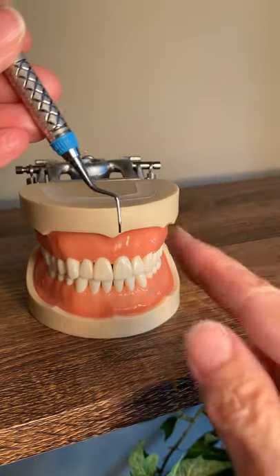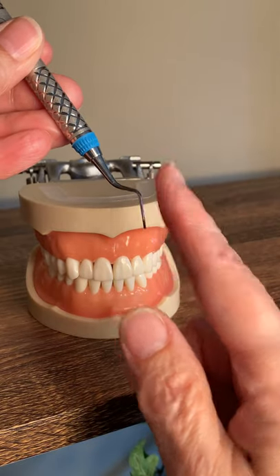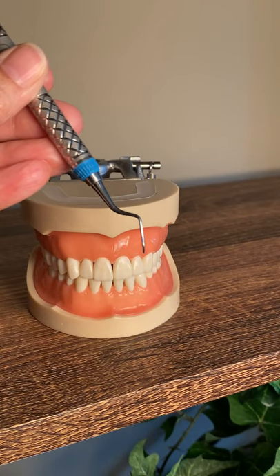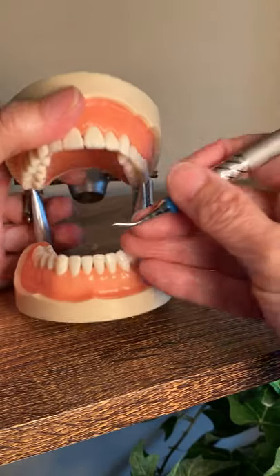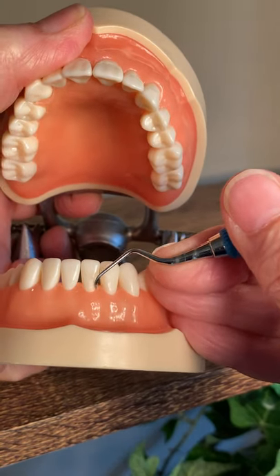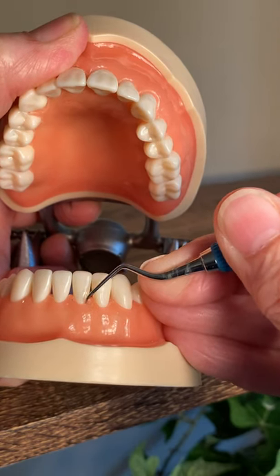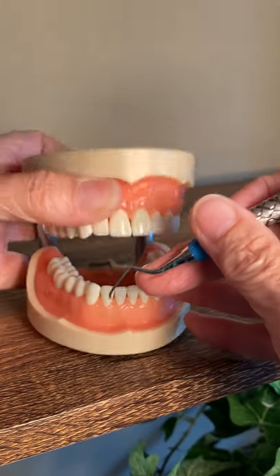Outside is the outside of the box, inside is the inside — if you had two other sides there. This is a really nice instrument. It works great in the anteriors too: because it has a rounded toe, you can pull it right down into that sulcus and pull it across. There are different ways to use this instrument.